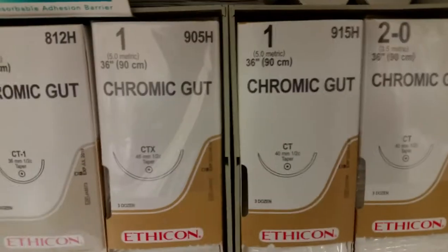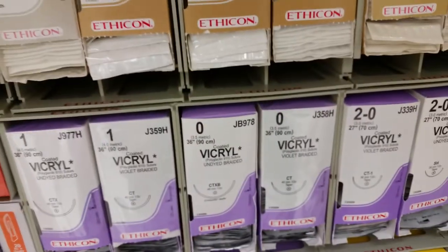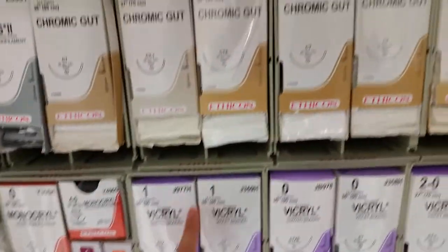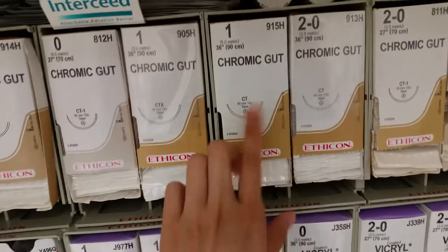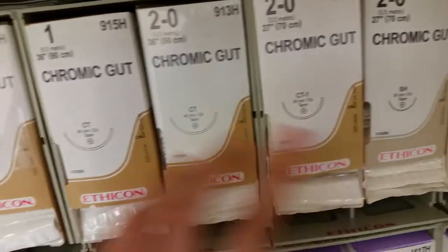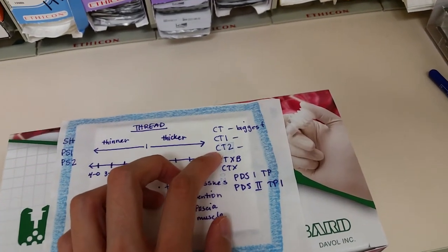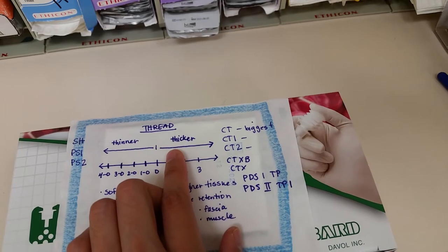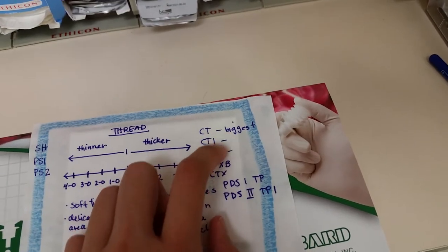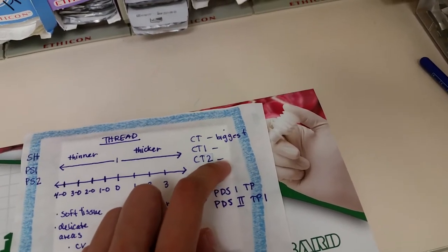Basically, this is the group of CTs — CT, CT1, and CT2. CT is this needle right here. No matter what box you have — whether it's PDS, monocryl, vicryl, or chromic — a CT needle will always be the same needle. CT1 will always be the same needle in every single one of them. CT is the biggest needle, CT1 is medium size, and CT2 is smaller.